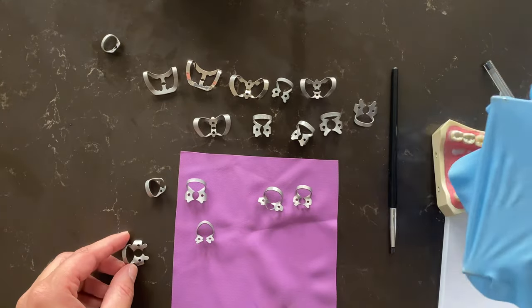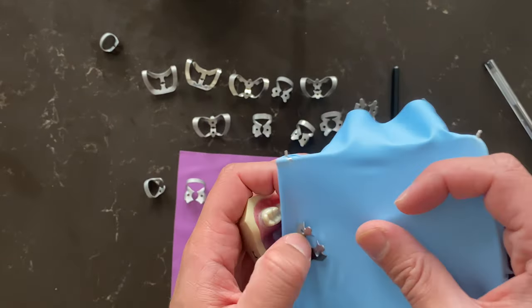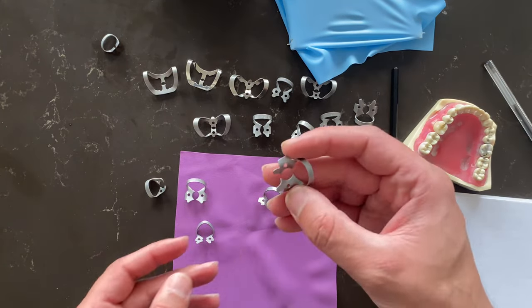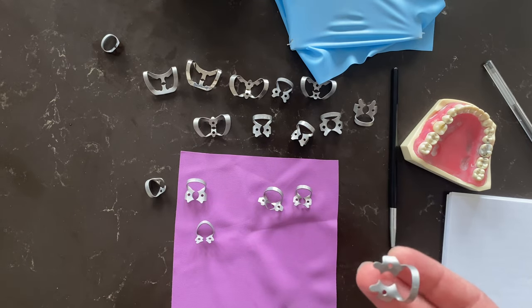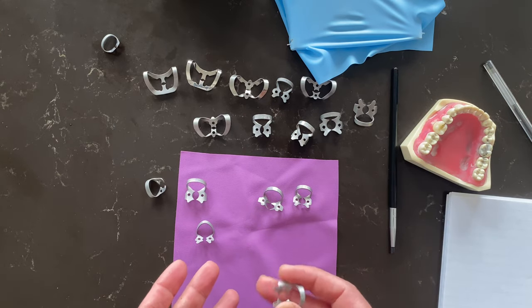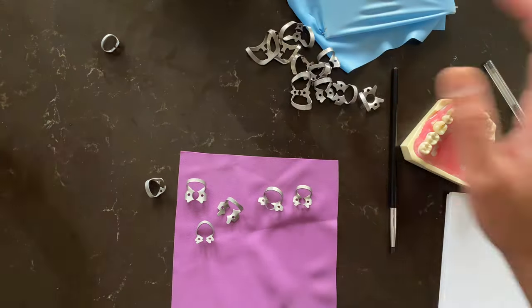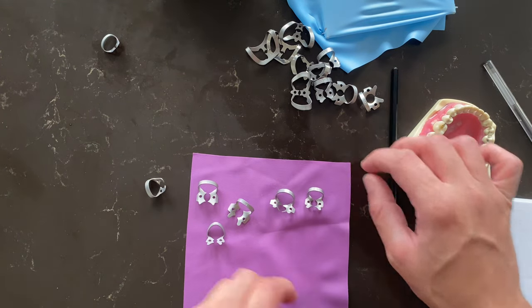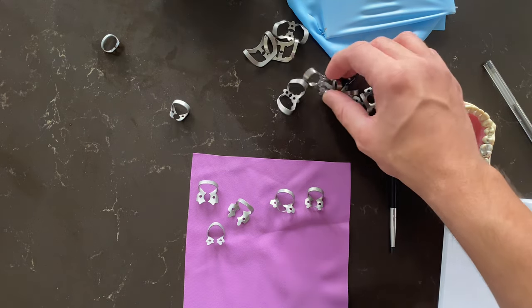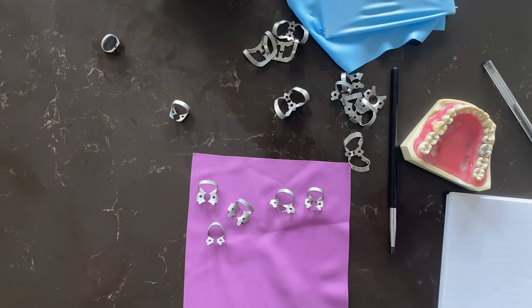Either way, whichever works for you — you can assemble it outside, or mix it up inside the mouth, clamp first or sheet first and clamp on top, it's your choice. What I have seen is in ADC, if you're getting the winged clamp, don't make your life difficult — just do all the assembly outside so you just place it in the mouth. When we talk about rubber dam, we will only be using five clamps. I'd really advise everybody to just worry about these five clamps — don't worry about all these 200 clamps.